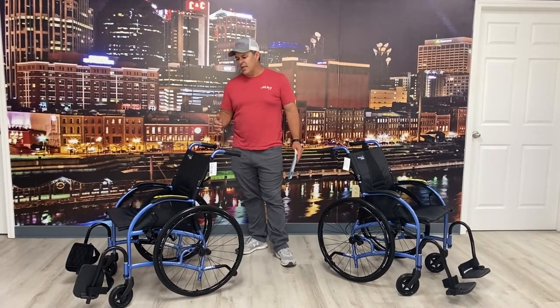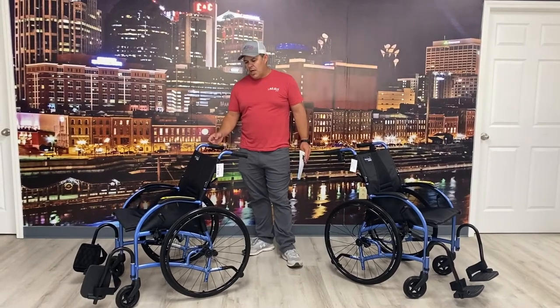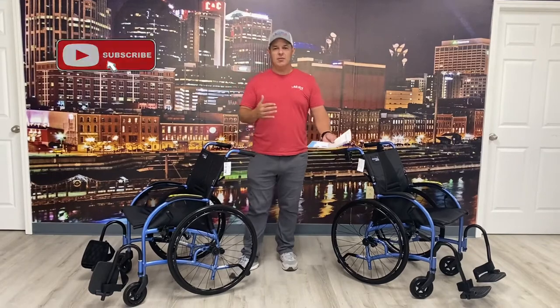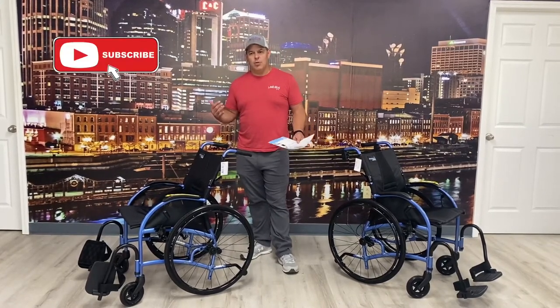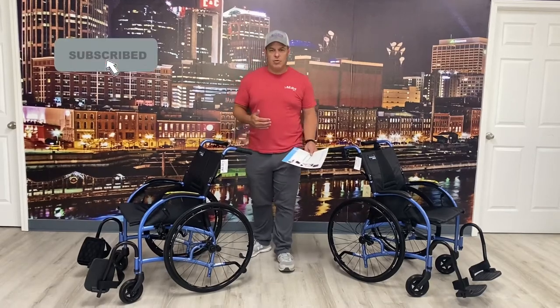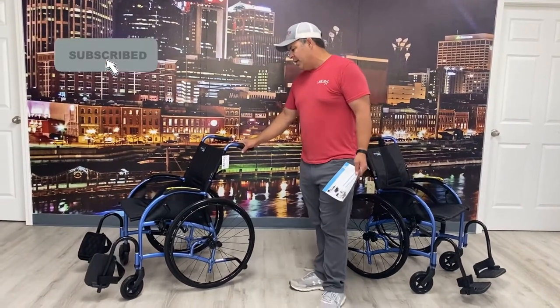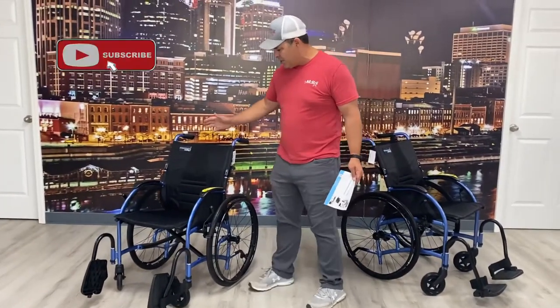These are sized 18 to 20 inches on the versions I'm going to show you here. What's nice about them is these come straight out of the box, can be delivered to your home or picked up in our store, and have little to no work to put them together — there's no special order on this, but they have some really cool features that I want to go over.